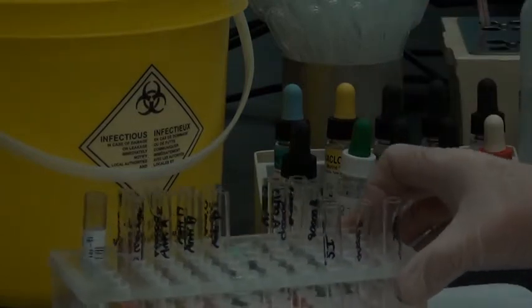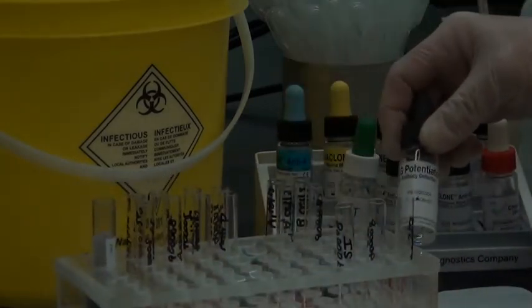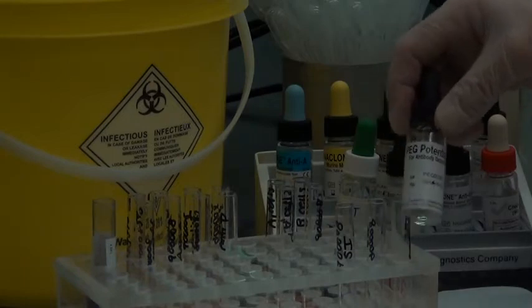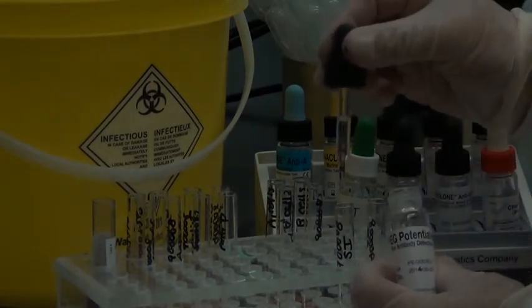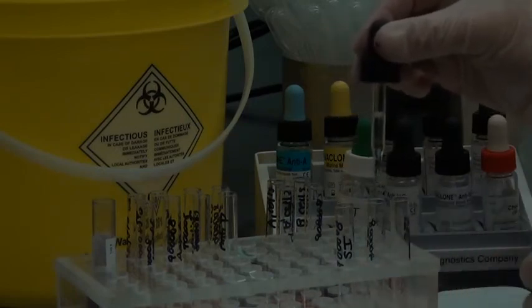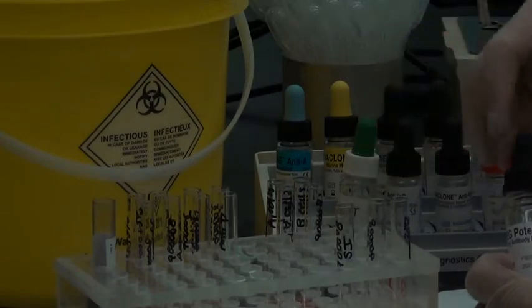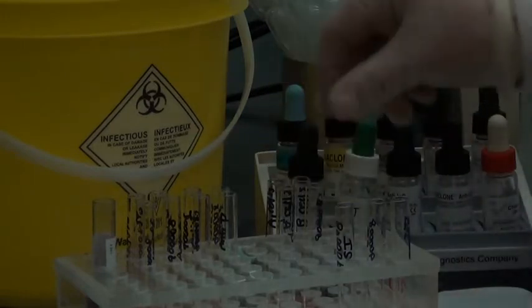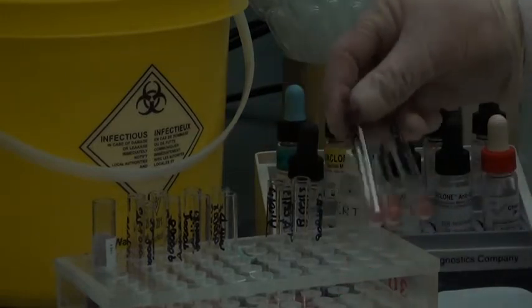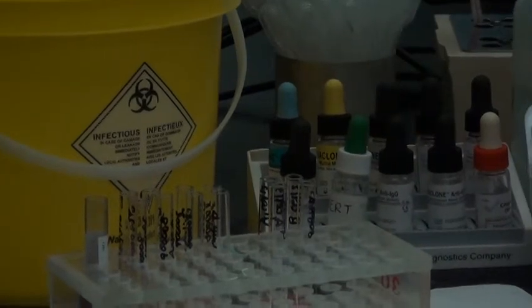Okay, so we've got our screening tubes just about ready to go. We have to remember to add PEG because this is the enhancement agent that we use here at SAIT. So the PEG is 2 drops per screening cell tube. It might have seemed like I put 3 in the one, but I missed 1 drop. It went down the side of the test tube, so I just added an extra one. Okay, and then these are ready to be incubated. So just give them a little waggle and into the incubator.